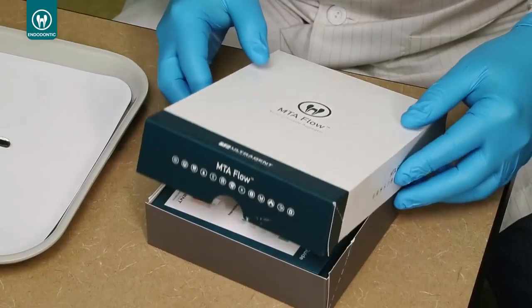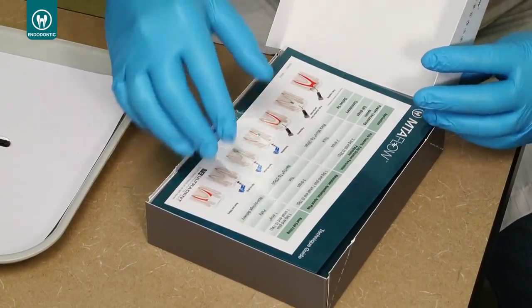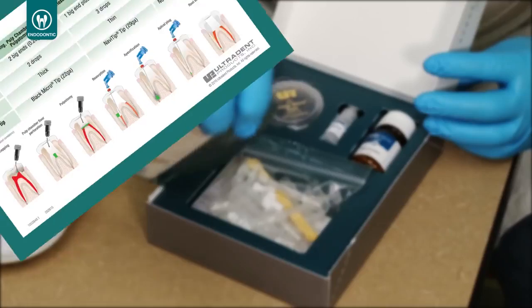The mixing ratio of powder and gel components of MTA Flow is adaptable based on procedure. A guide is included in the kit which will define the ratio of powder to gel to obtain the consistency desired.